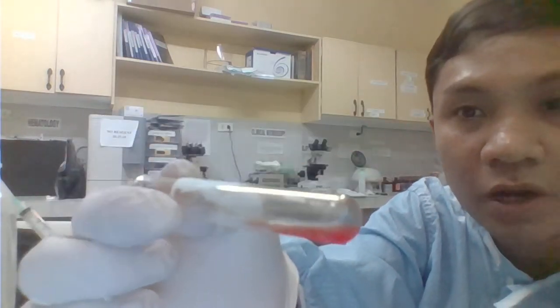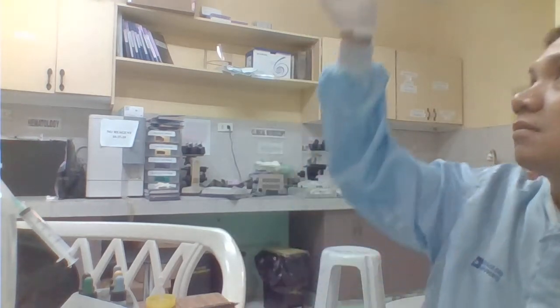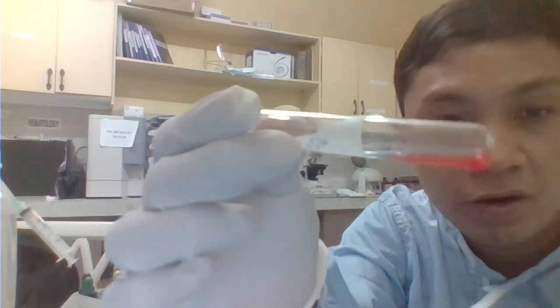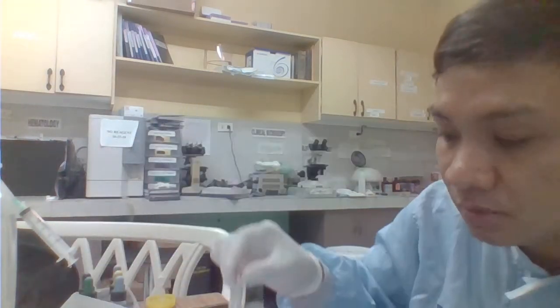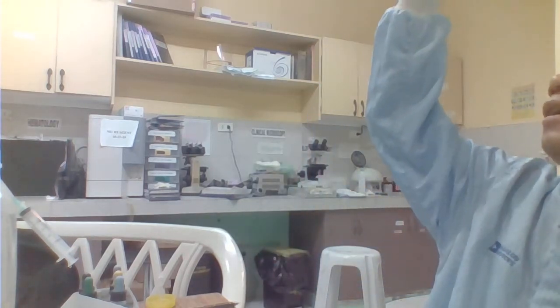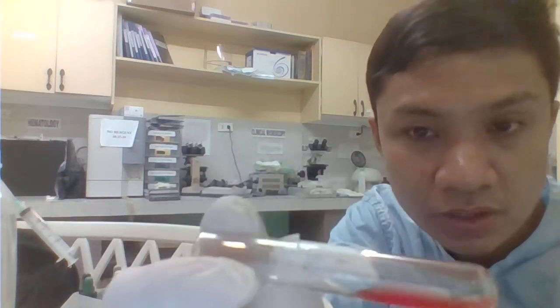This one would have your no agglutination reaction. 1:256, no agglutination reaction. In the last tube, 1:512 na dilution, no agglutination reaction.